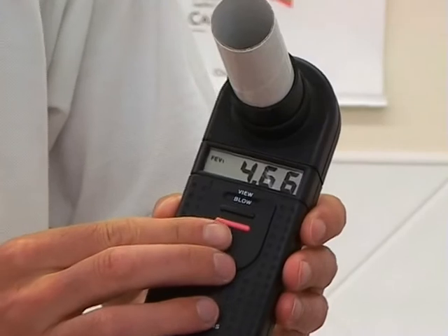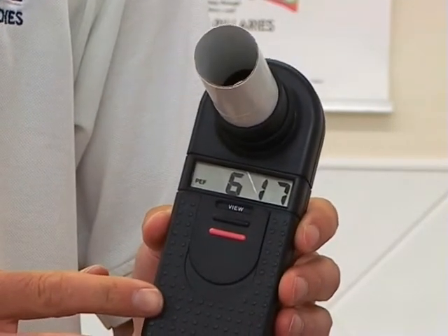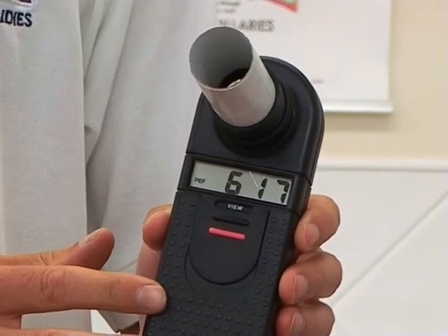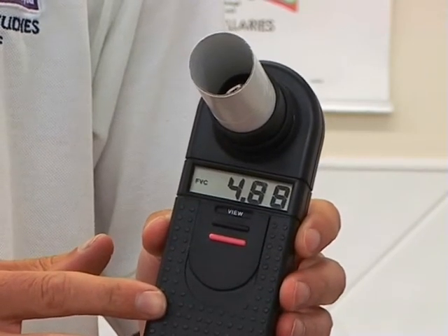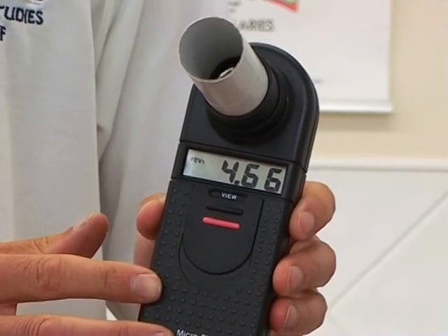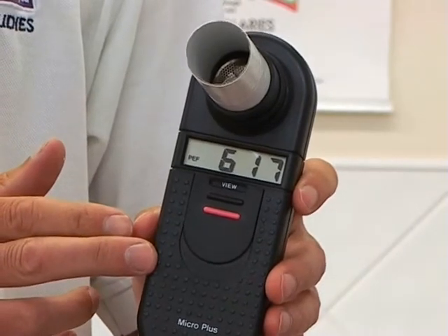The selector can then be slid to the top setting called view, and this will now display four readings. The first one is titled FVC, which stands for forced vital capacity. The second is FEV1, which is forced expired volume in one second. Third would be FER, forced expired ratio. And finally PEF, which is a peak flow reading. The device toggles between the four settings each time it beeps and therefore displays your results.